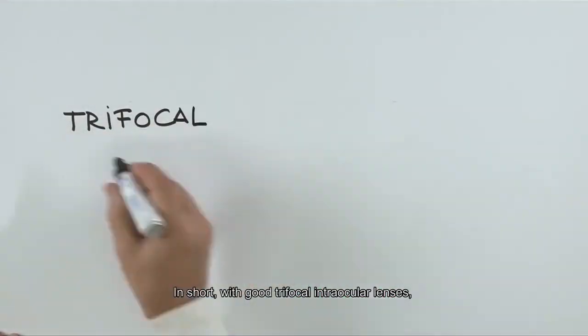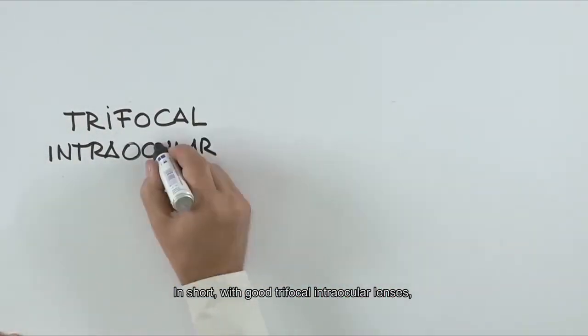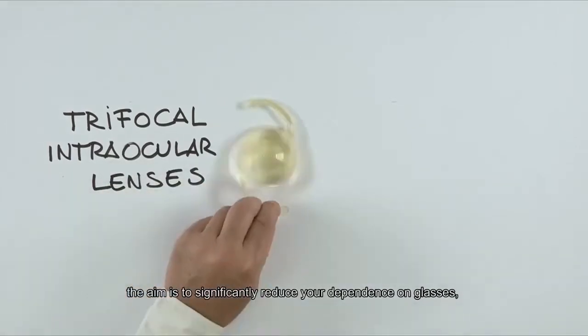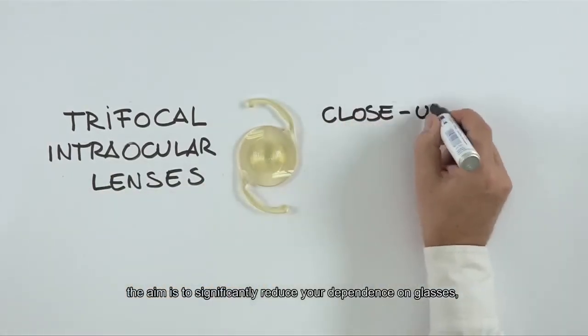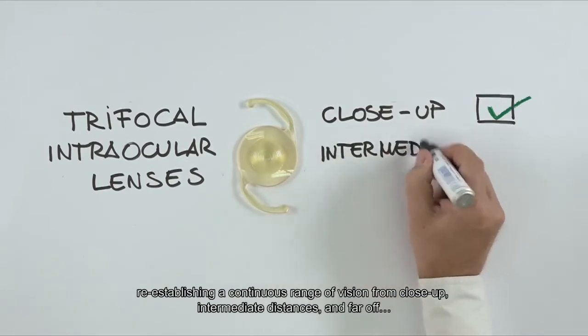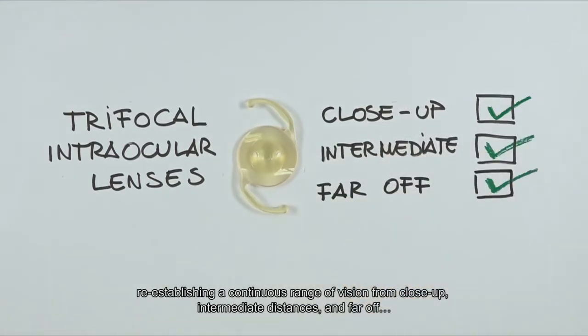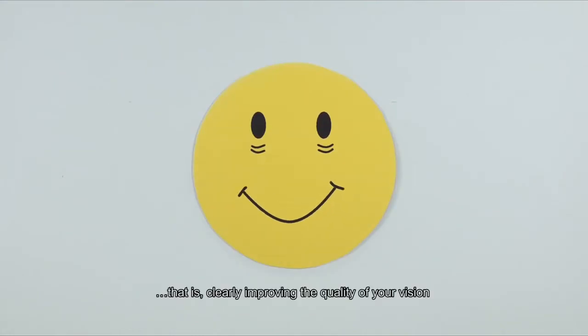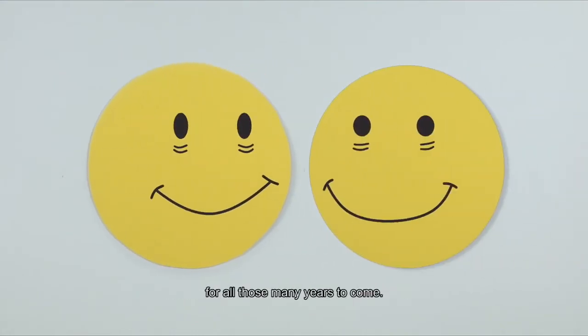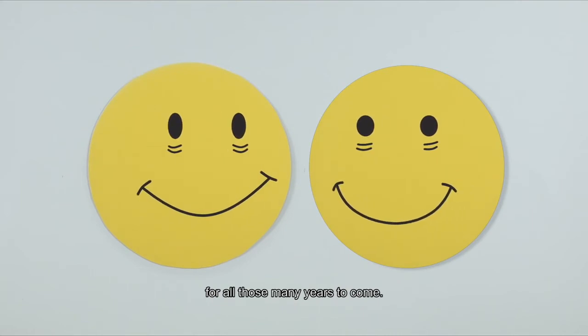In short, with good trifocal intraocular lenses, the aim is to significantly reduce your dependence on glasses, reestablishing a continuous range of vision from close up, intermediate distances, and far off. That is, clearly improving the quality of your vision for all those many years to come.